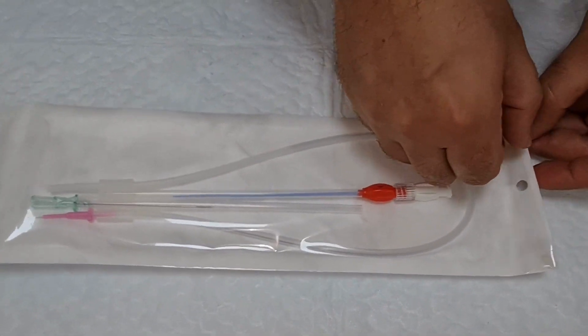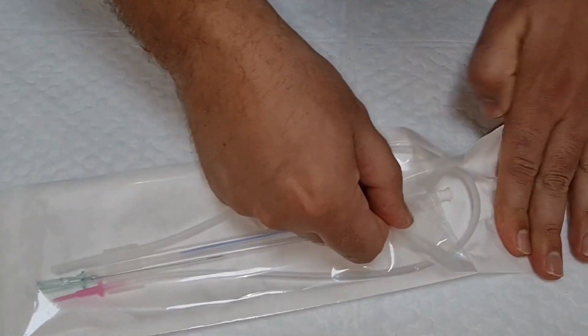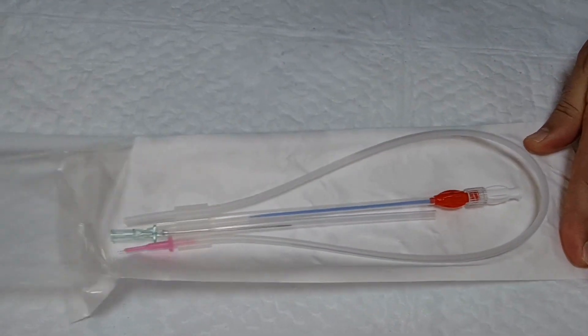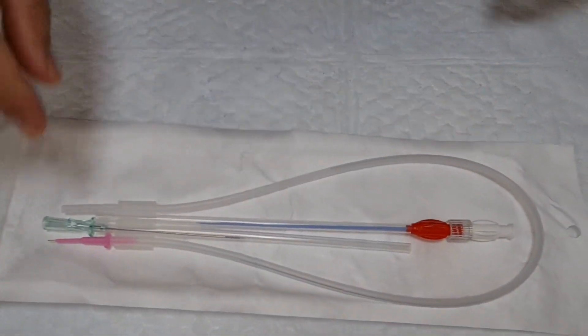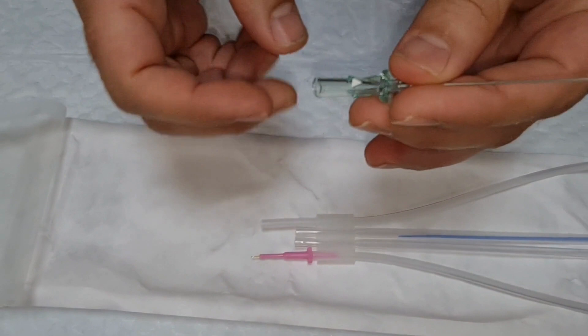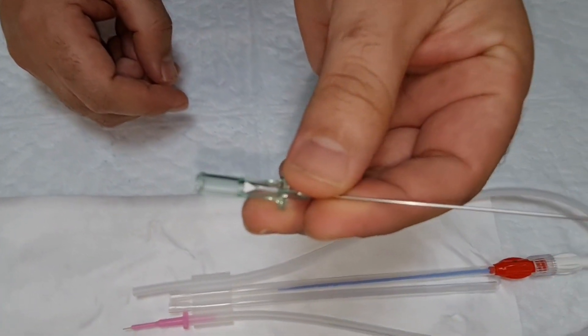Let's open this. Once you open this, you will find the components inside, which is the puncture needle. As you can see, this is the puncture needle.